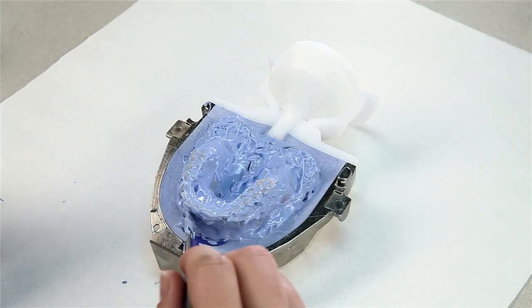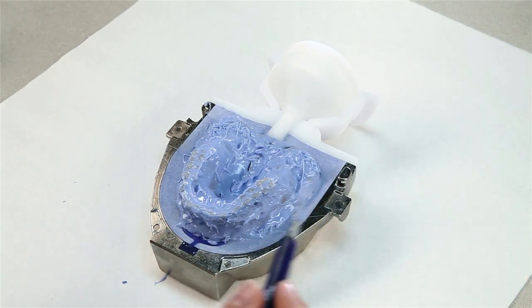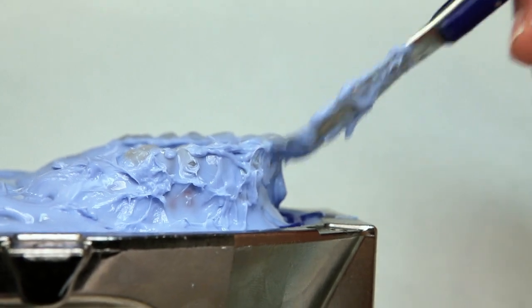Apply retentive patterns in the surface of the silicone before it sets to secure the silicone in the stone of the counter model.